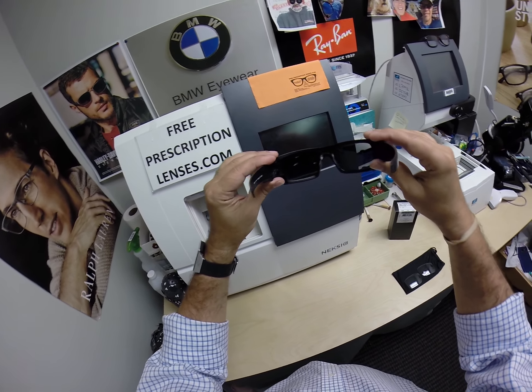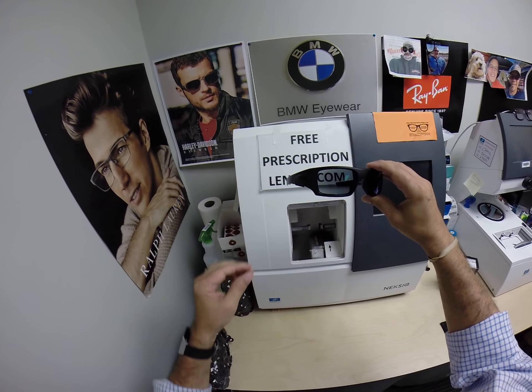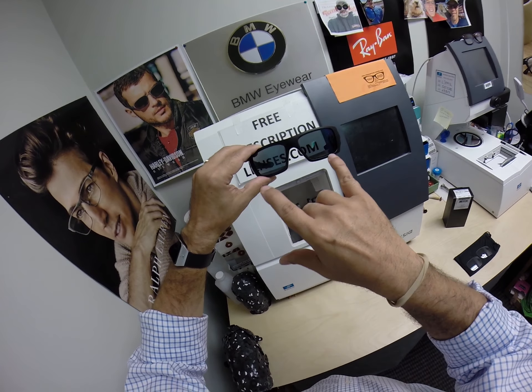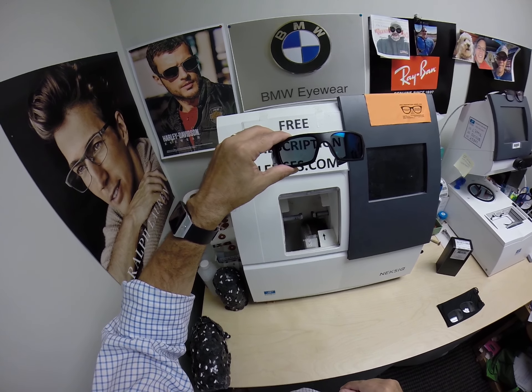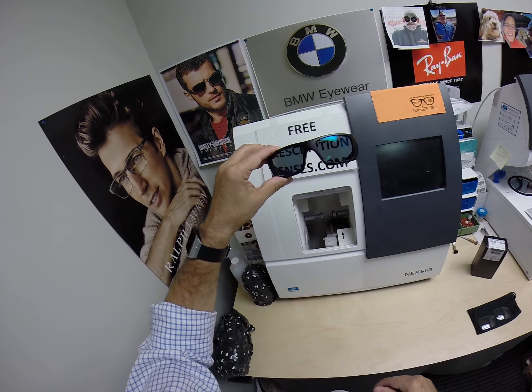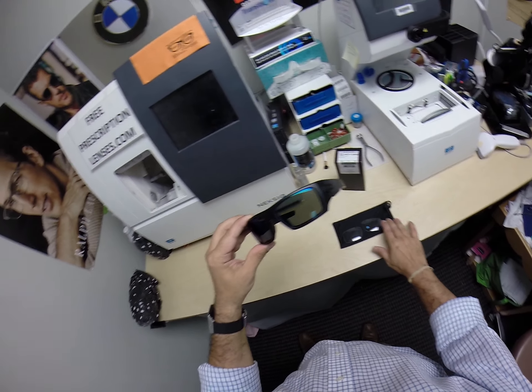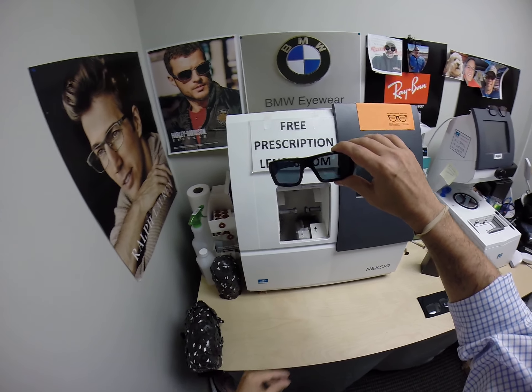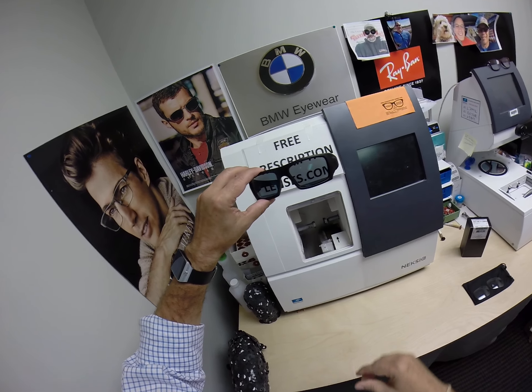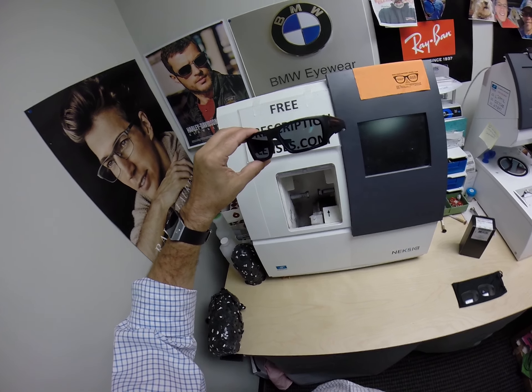This is actually the most comprehensive, most complete lens combination possible. You have your prescription lenses — OSHA approved so you can go onto any federal job site — the Transitions XTRAactive, the green flash mirror, the back surface anti-glare coating, and up to 70 percent blue light protection, as well as one really cool pair of glasses. I should mention that I am an authorized Oakley dealer, but as a small independent optician, I'm told there are only 10 large companies allowed to sell Oakleys on their websites.